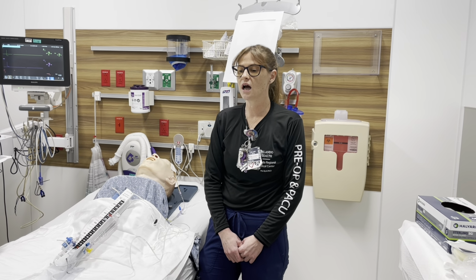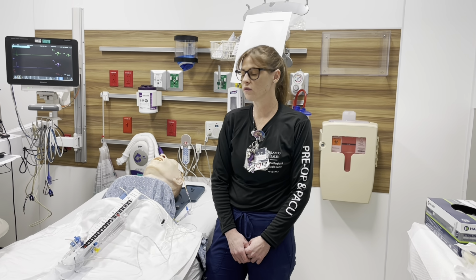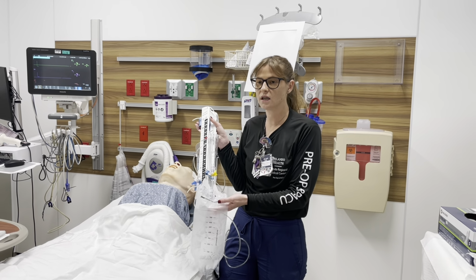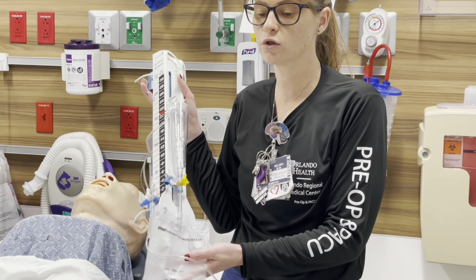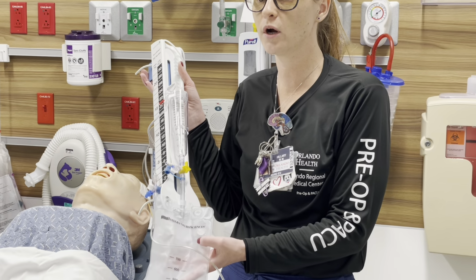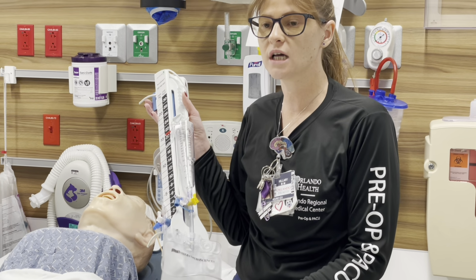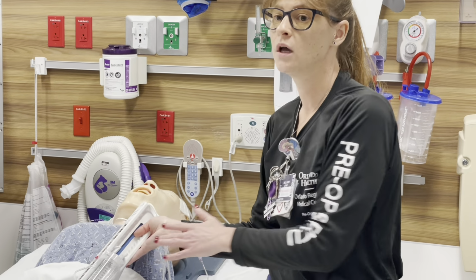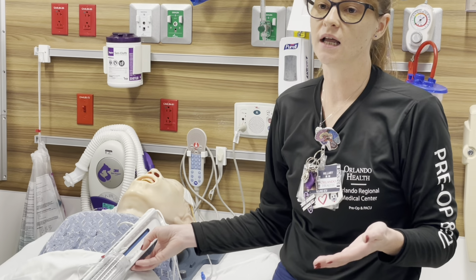One of the things that's going to happen is when the patients come out from the OR, they're going to come out with this type of drain here. A lot of times it is assumed that it's an EVD, which means it sits in the ventricle of the brain versus other spaces of the brain. It's important to look at your order sets and know where exactly this drain is. Just because it comes out on this type of device does not mean that it is in the ventricle.